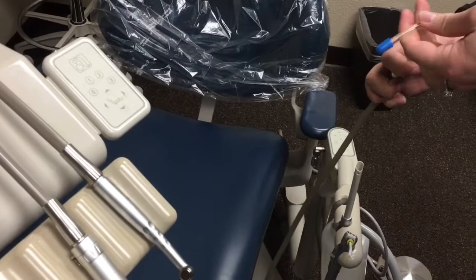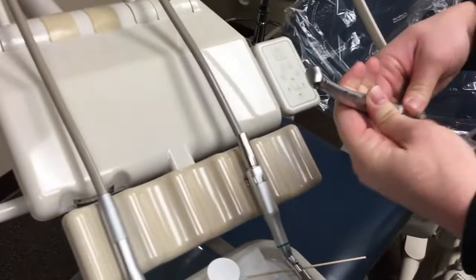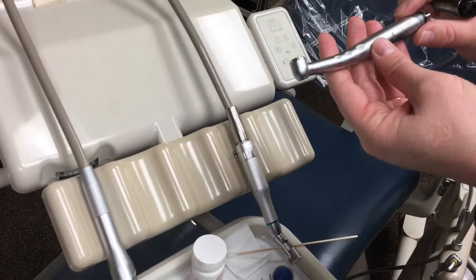This one is lined with copper wire so we're able to twist it. The next things on here are going to be our high speed handpiece. It's very easy to plug in — it has a bunch of prongs on the bottom, it has the motor built inside of it, and it's slightly curved. That's how we can tell it's the high speed. We just take the prongs and match them up with the holes and then screw it on.